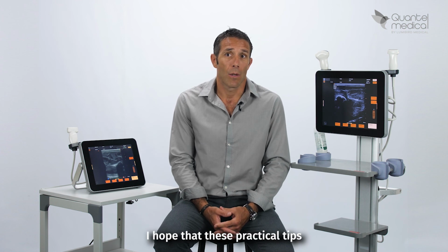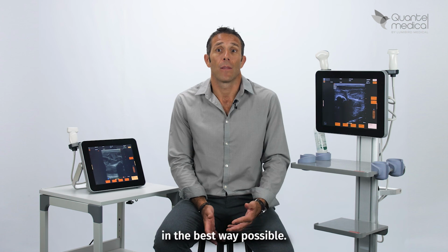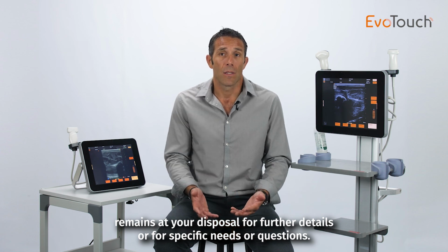I hope that these practical tips will be useful and help you to adjust the image in the best way possible. The Quantel Medical teams remain at your disposal for further details or for specific needs or questions.